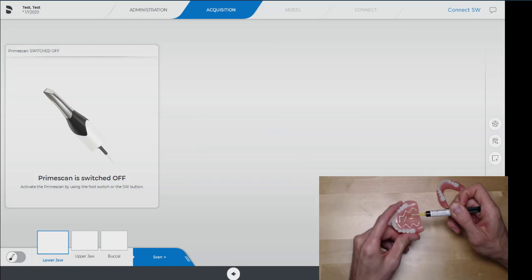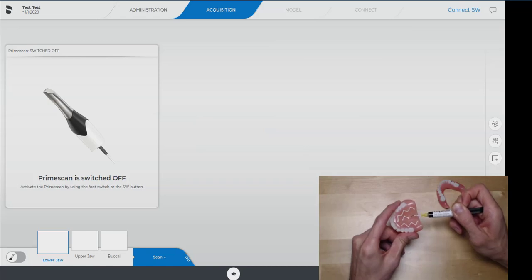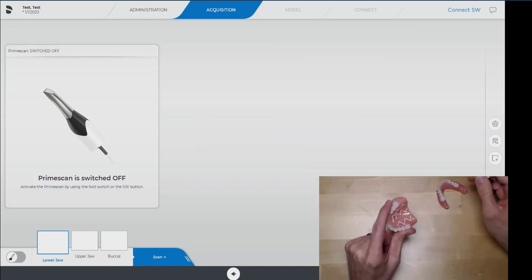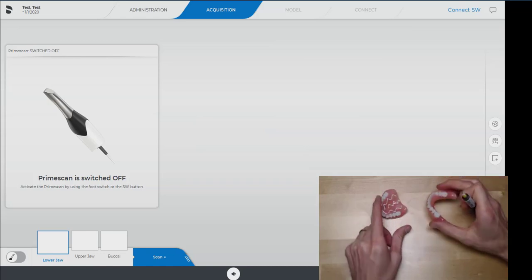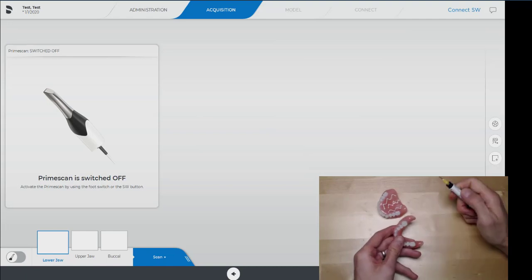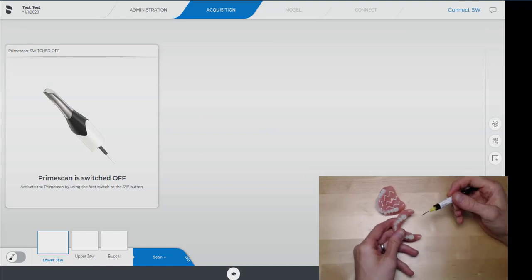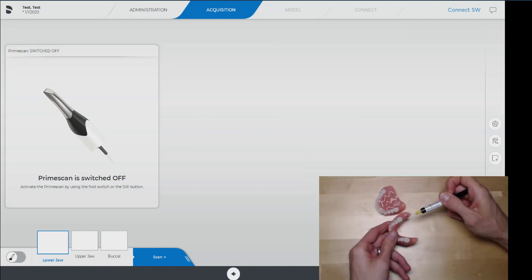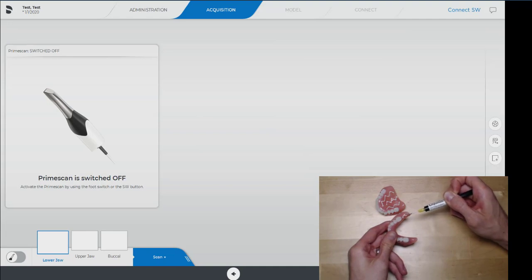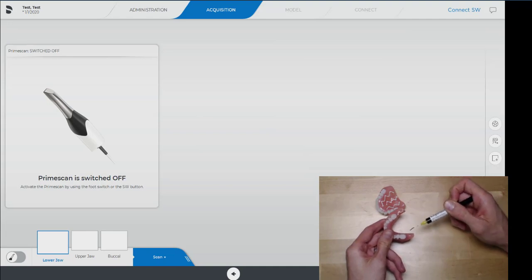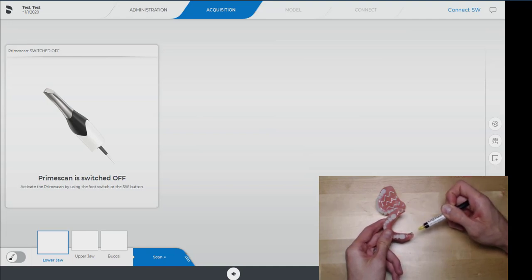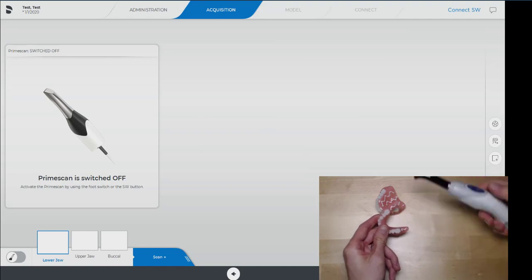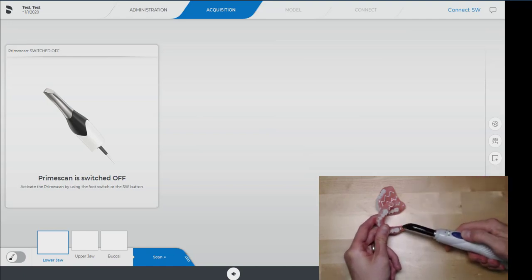So you can do these in different ways. This is just whatever strikes me that day is how I design it. In this area can be a little bit of trouble, not all the time, but we're going to add some designs here. Okay, we're going to cure these.